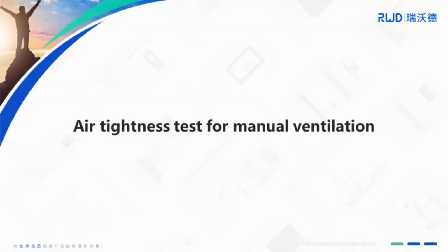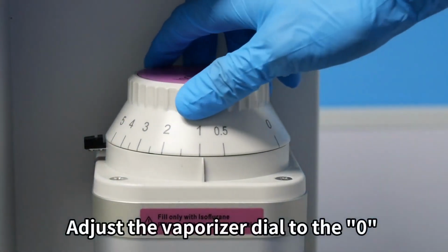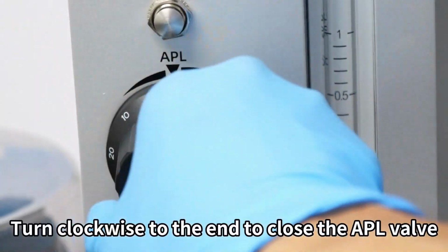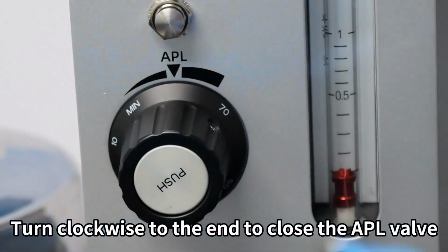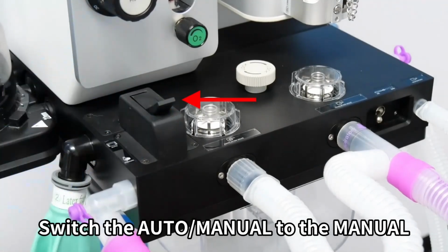Air tightness test for manual ventilation. Perform air tightness testing according to the on-screen prompts. Adjust the vaporizer dial to 0. Turn clockwise to the end to close the APL valve. Seal the animal port of the circuit. Switch auto or manual to manual.